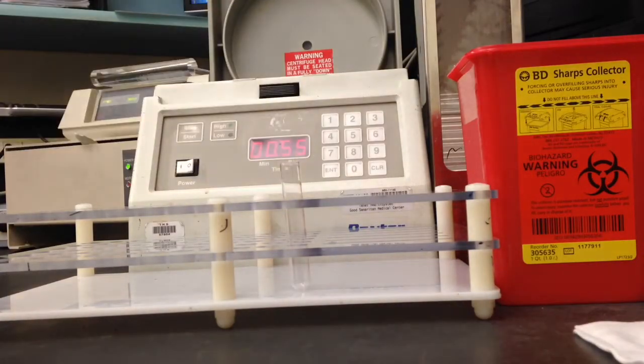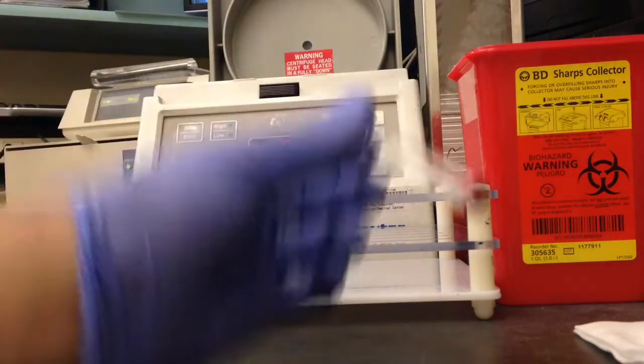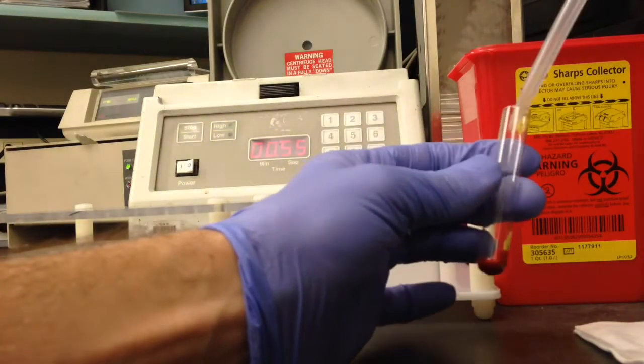Rarely will you ever actually have to do a manual cell wash, but in case your cell washer ever breaks, you will. Also for pre-warms.